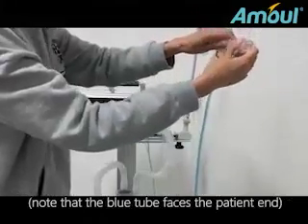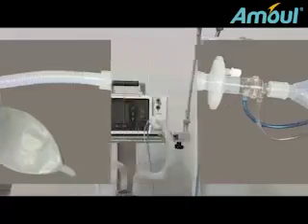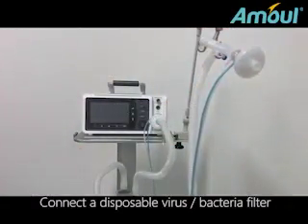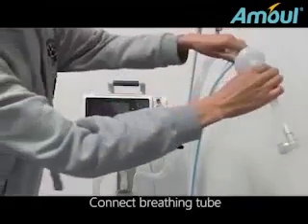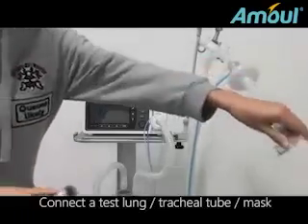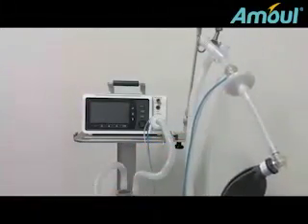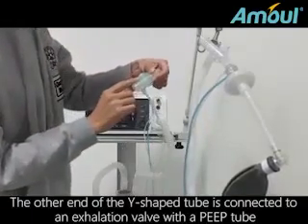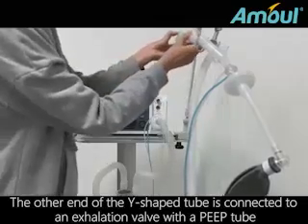Note that the blue tube faces the patient end. Connect a disposable virus bacteria filter. Connect breathing tube. Connect a test lung, tracheal tube, or mask. The other end of the Y-shaped tube is connected to an exhalation valve with a PEEP tube.